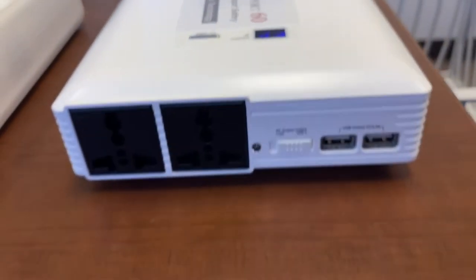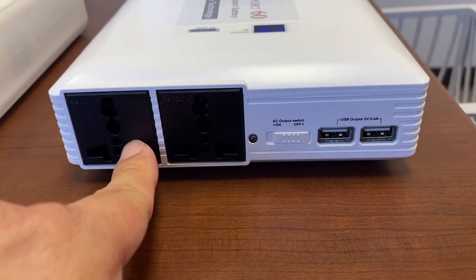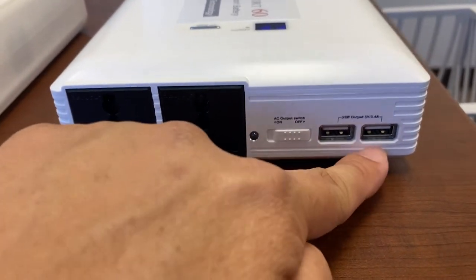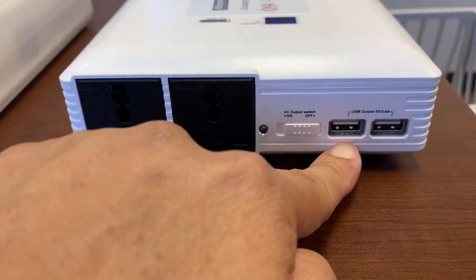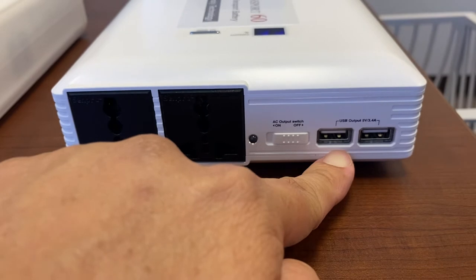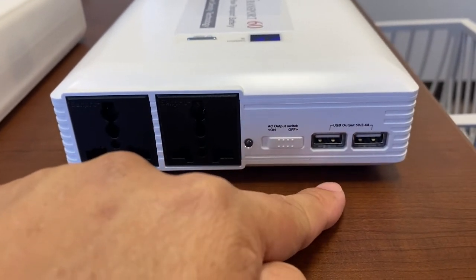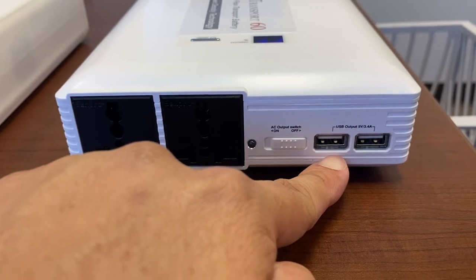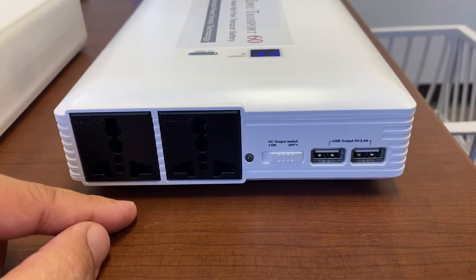In the front of the battery you have two AC outlets with a universal plug-in and two USB ports. The USB ports are designed for an Aerogen nebulizer, because we can transport for so long it's good to have this available in case patients need a nebulizer.